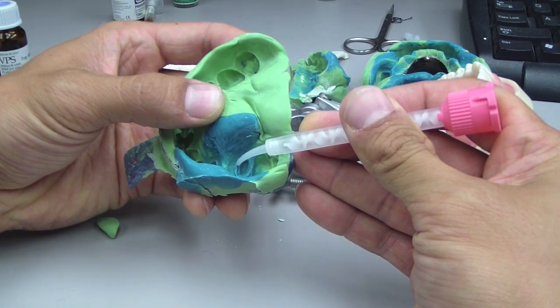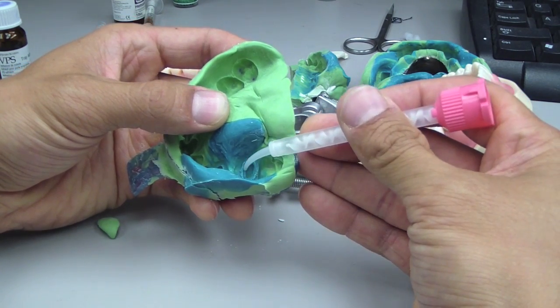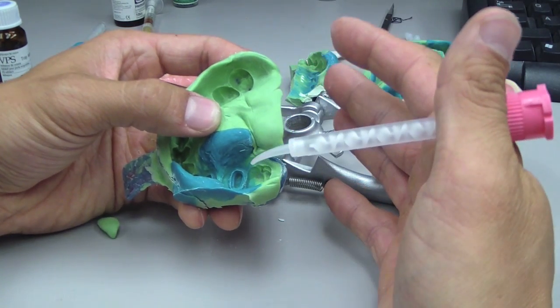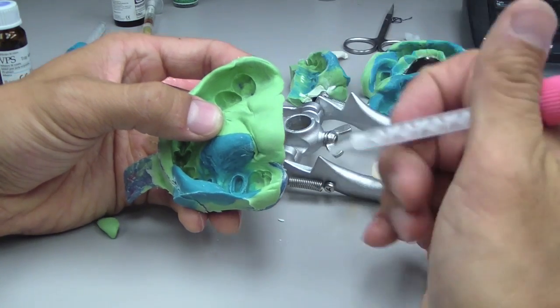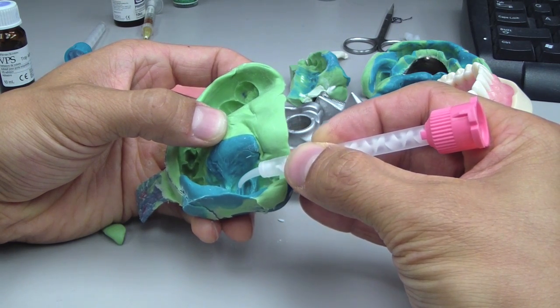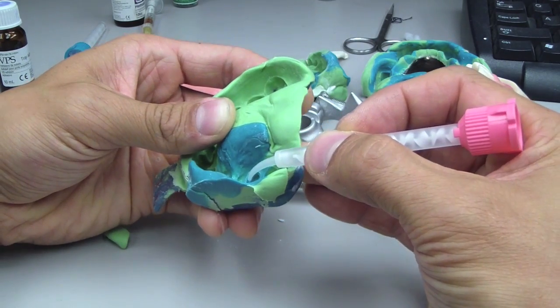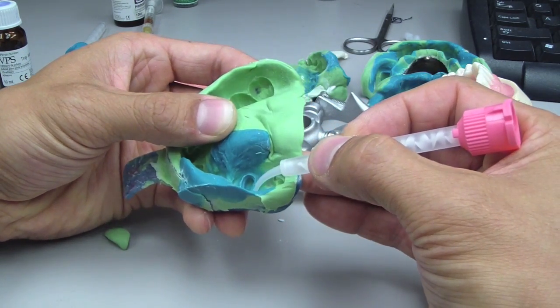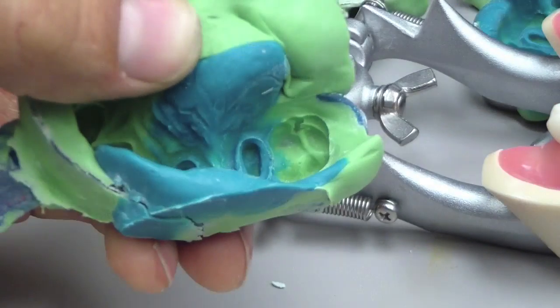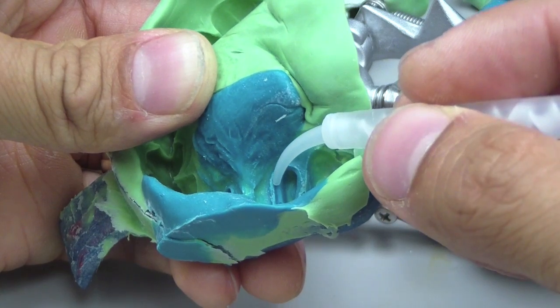We're also balancing between plastic deformation — as this material comes out of an undercut, how well does it retain its elastic deformation and return to its original shape, versus being plastically deformed. When the sulcular width was greater than 0.2 millimeters, there were minimal marginal discrepancy defects. You can see here that a region with minimal impression material going into the sulcus will give you more defects compared to a well-displaced sulcus.